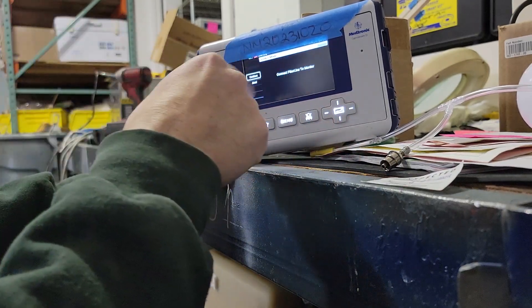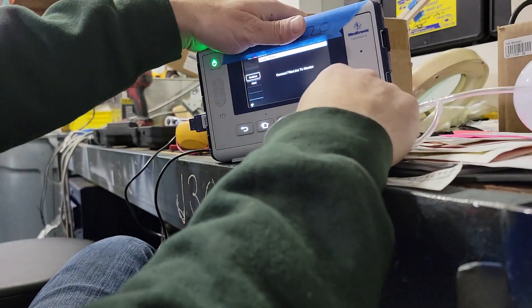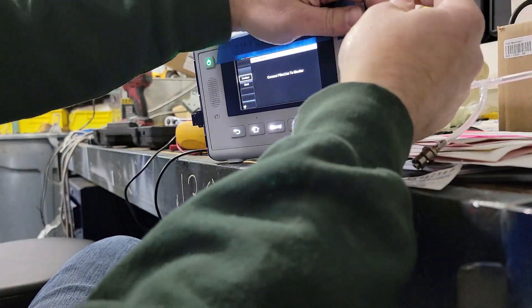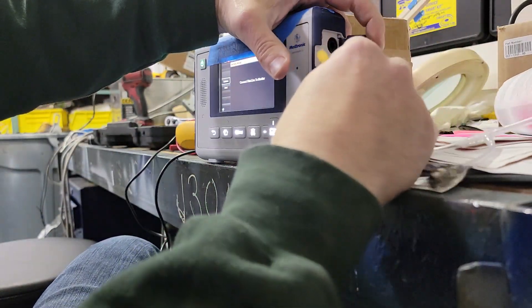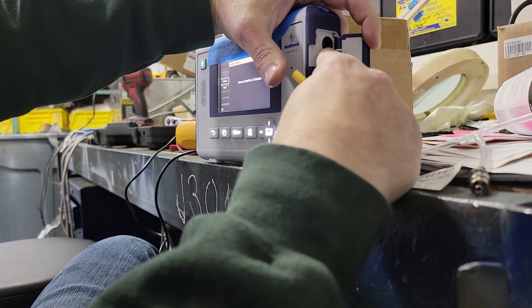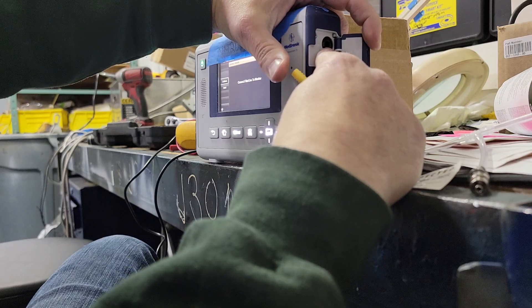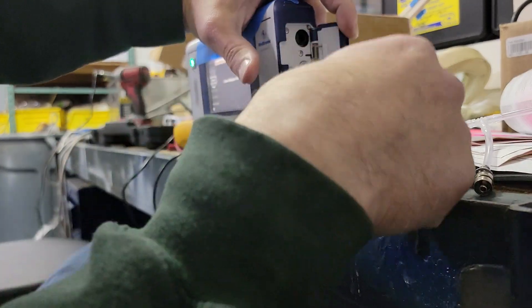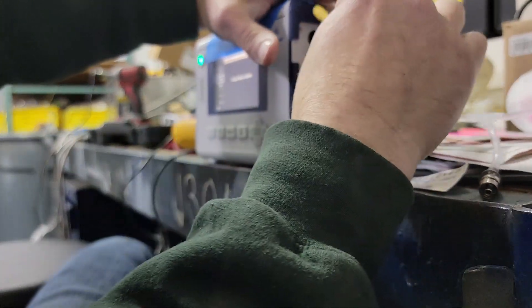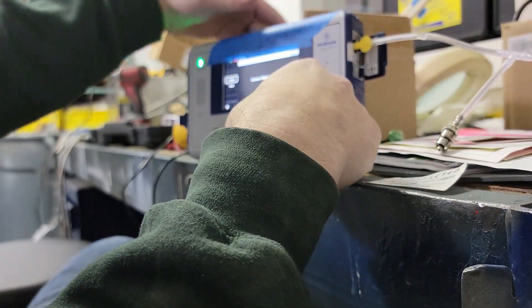Continue. Connect the filter line. You will hear it when you are connected properly to this port right here. You see that black thing there. Push this in. There we go. It's got the little metal on there, so that's how it knows it's connected.